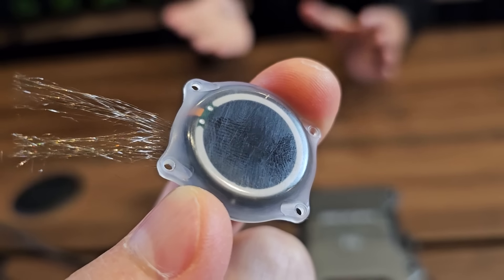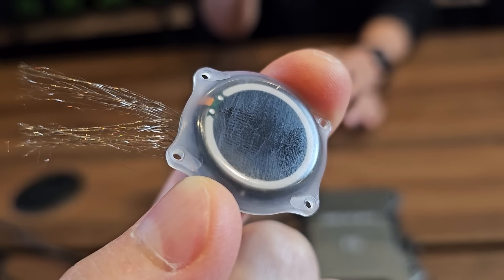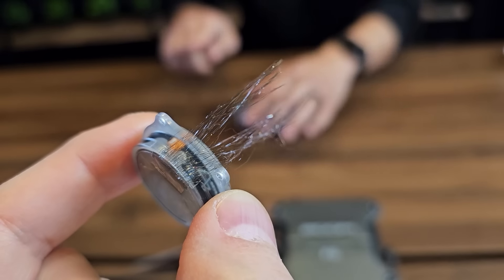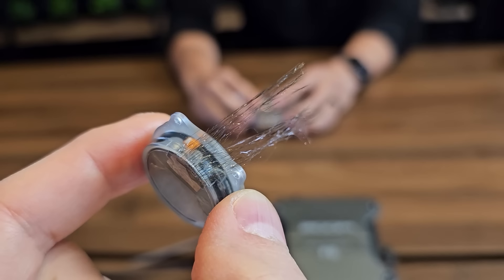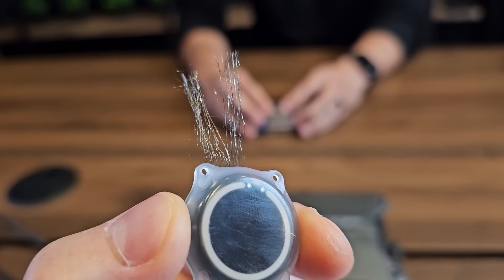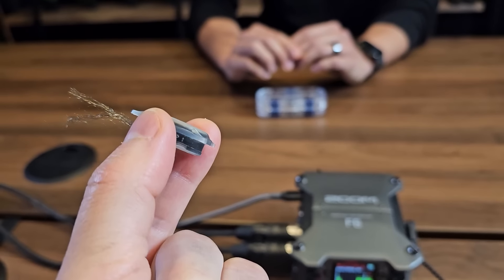At the end of the day, once you have the skin flap over, there's only about two to three millimeters transitioning off the top of the implant to where the screws are. That's the minor bump that you have. Those threads look tiny — that is really incredible. And as you're right, most of the actual volume is the battery.